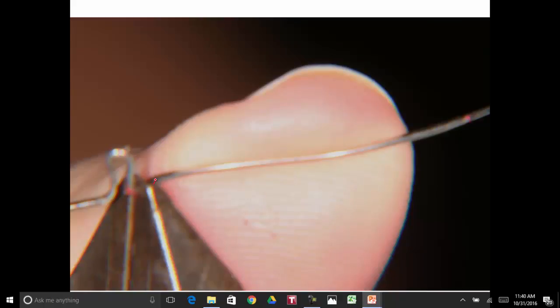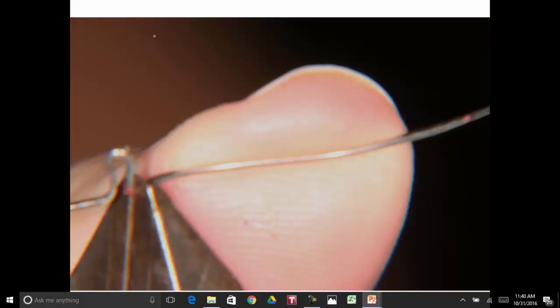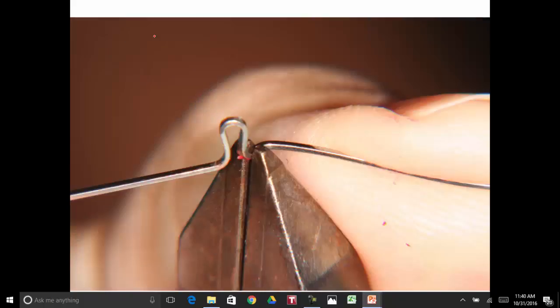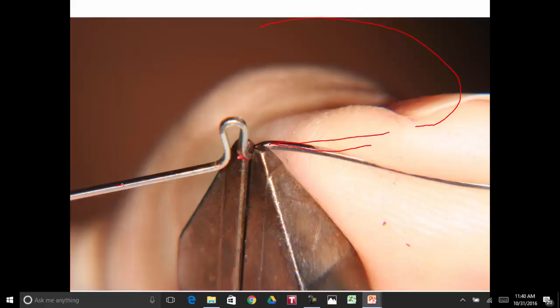Now we grab it with a plier here and bend it back, and the archwire will be going that way. There's a lot to bending archwire in orthodontics, and a lot of people try to do it without doing any bending, but to do it properly, you've got to learn how to bend the wire. Now we catch it and bend the wire back, straighten it out. It's going to come around, so this omega will be sitting in here and up, and then come over, and then come back in that fashion there.